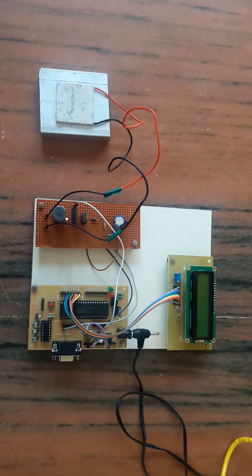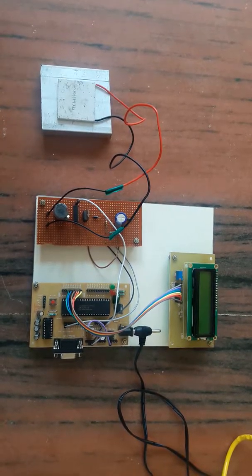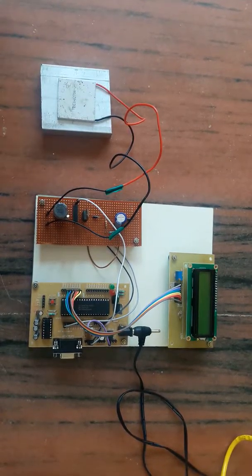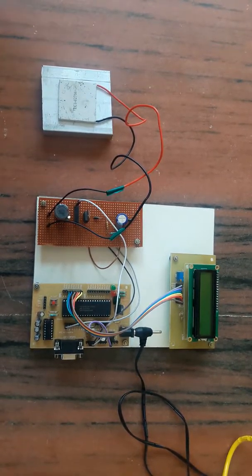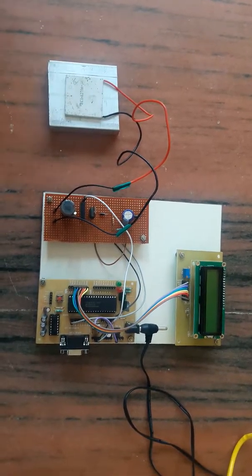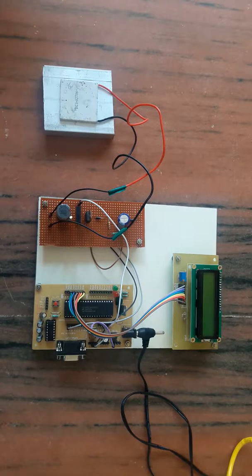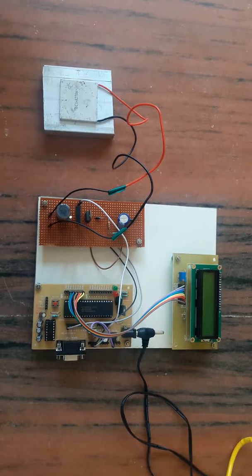This experimental setup is an internal start-up for pacemakers with thermal harvesting technology. There are about 3 million people with pacemakers throughout the world, and it is implanted for people of any age. Even children are implanted with pacemakers. A pacemaker is a small device which is implanted just below the collarbone and weighs about one ounce.